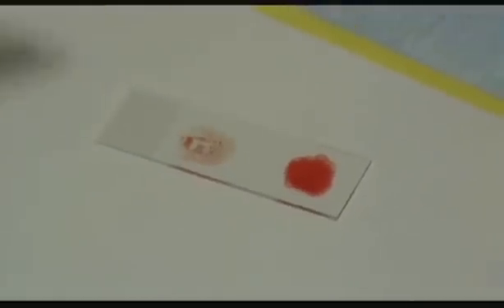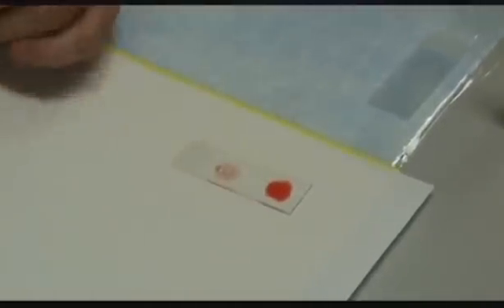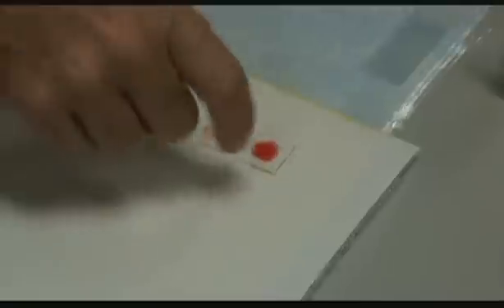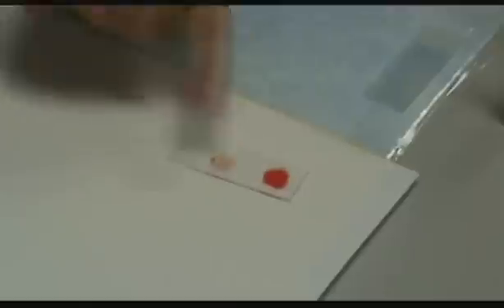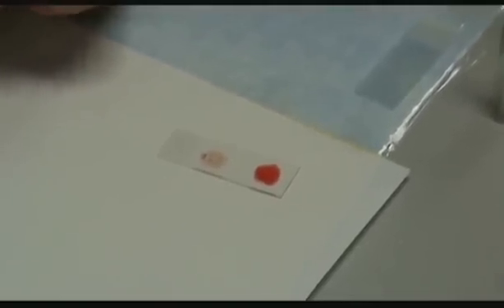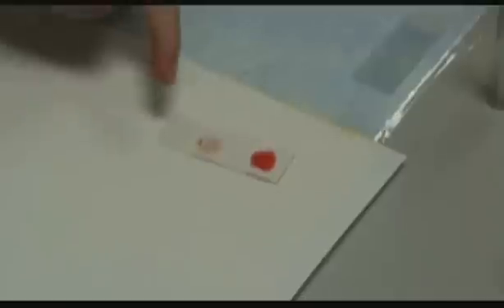So what we would do now is basically let it air dry — you want that thick smear to dry. And then what we would do is fix the thin smear in methanol, but we would not fix the thick smear. Once the thin smear is fixed in methanol, the red cells remain intact, so that when you then place the entire slide into the Giemsa staining solution, the thin smear cells do not lyse and the Giemsa actually stains the parasite. Here on the thick smear side, the red cells will lyse and the parasites are directly adherent onto the slide and they take up the Giemsa stain. So you have a higher concentration of red cells there, meaning more parasites, but the architecture is different. So actually speciating based on a thick smear is a much more subtle skill than looking at a thin smear.